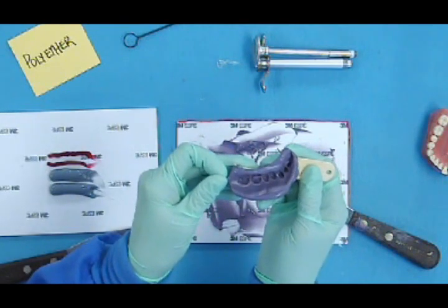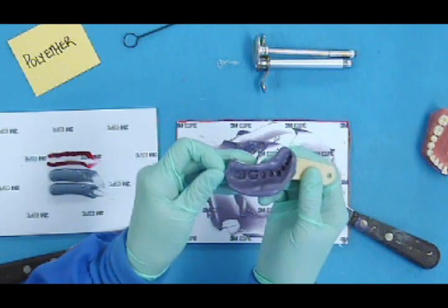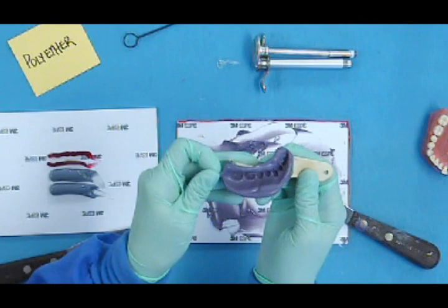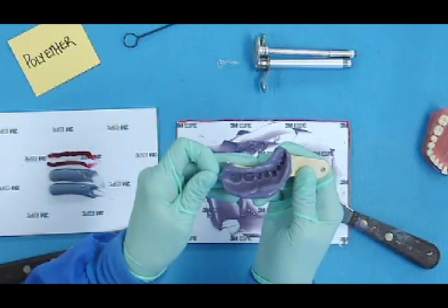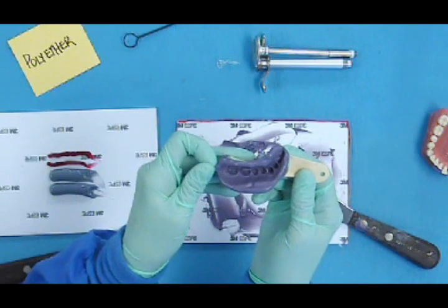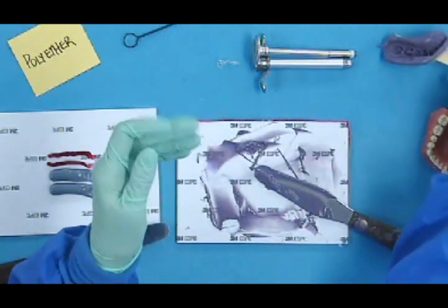This material likes for the area to be dry, but it is a little bit more forgiving with some moisture. It's not hydrophobic, it's hydrophilic. So it's not scared of water, but it is adaptable to water.